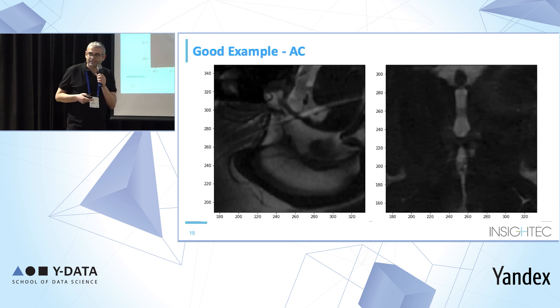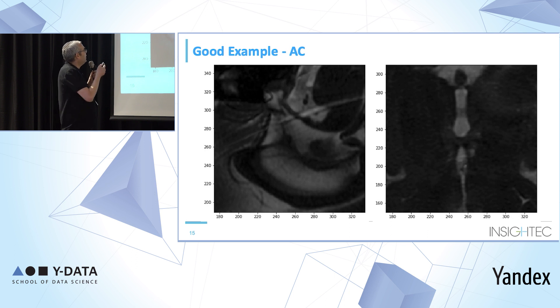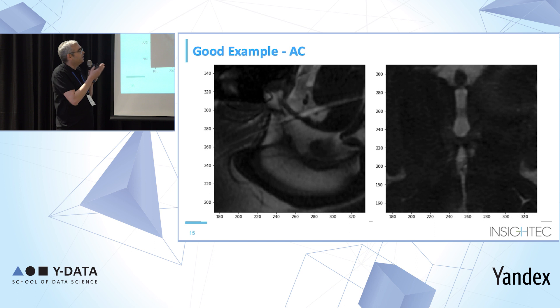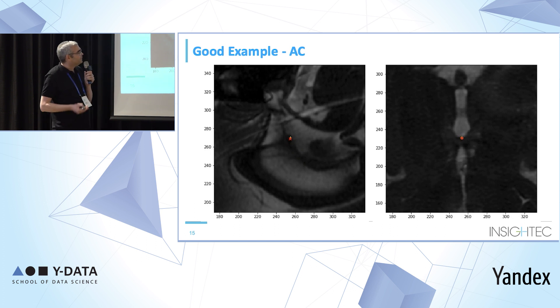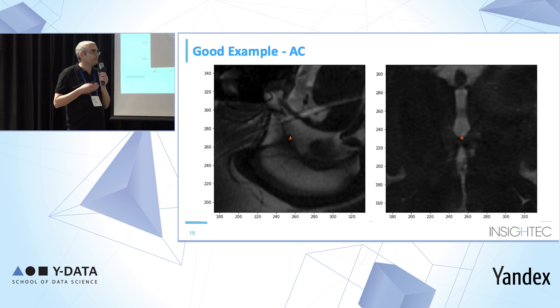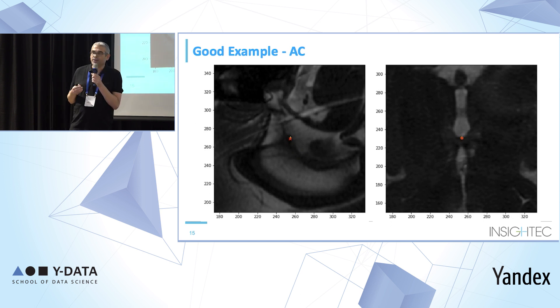Here is the typical case. In the left image you can see part of the sagittal image slice, and in the right one the axial. The yellow cross is the result of the predictor and the red cross is what the user assigned. We can see they are very close to each other. This is what happened in most cases.